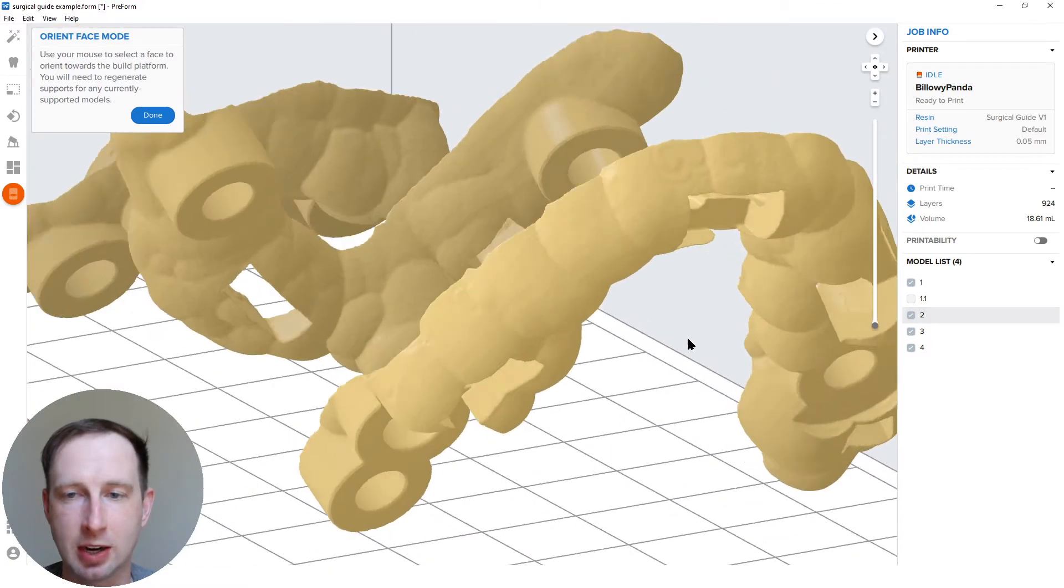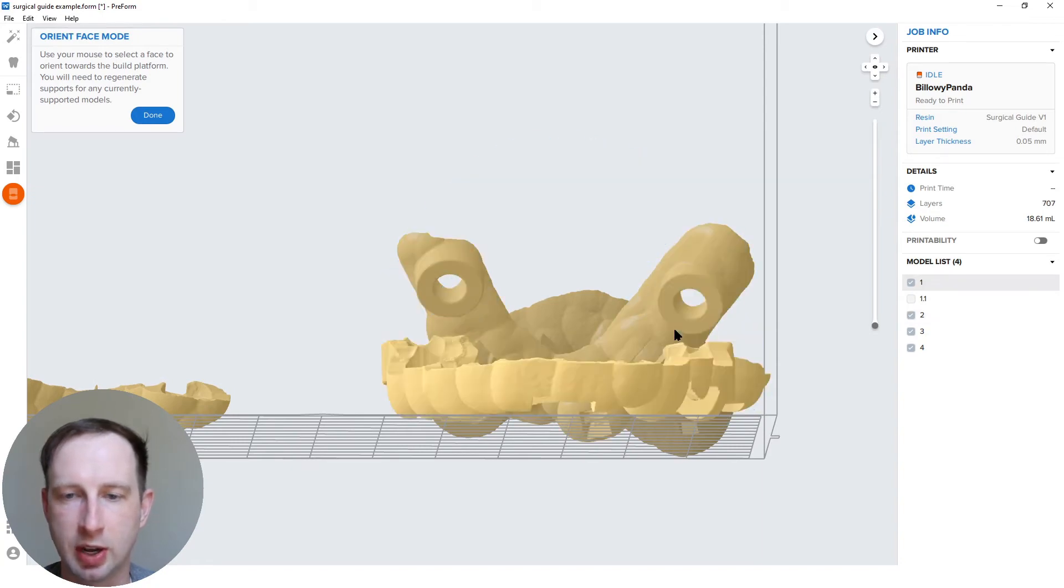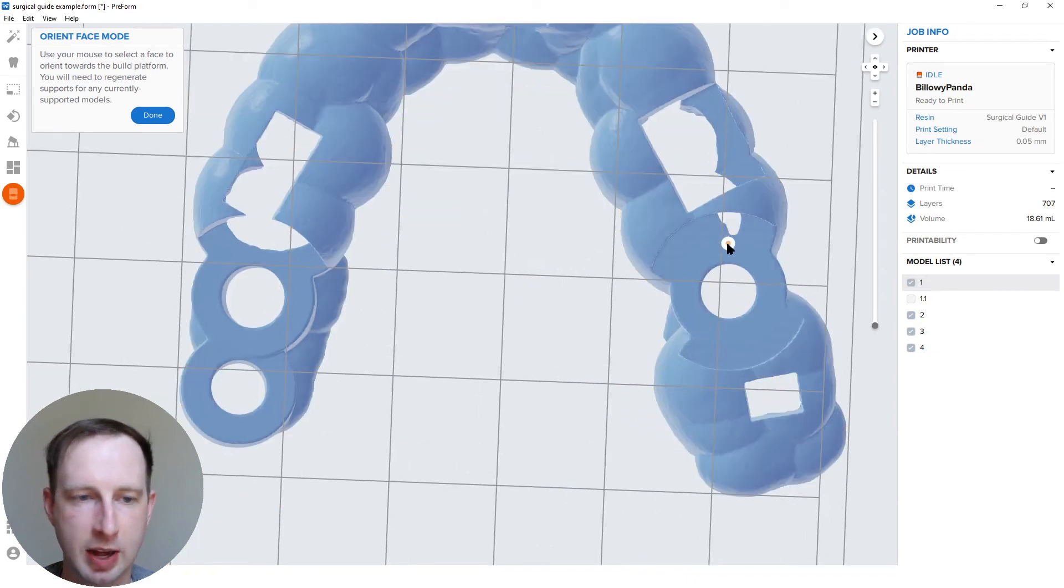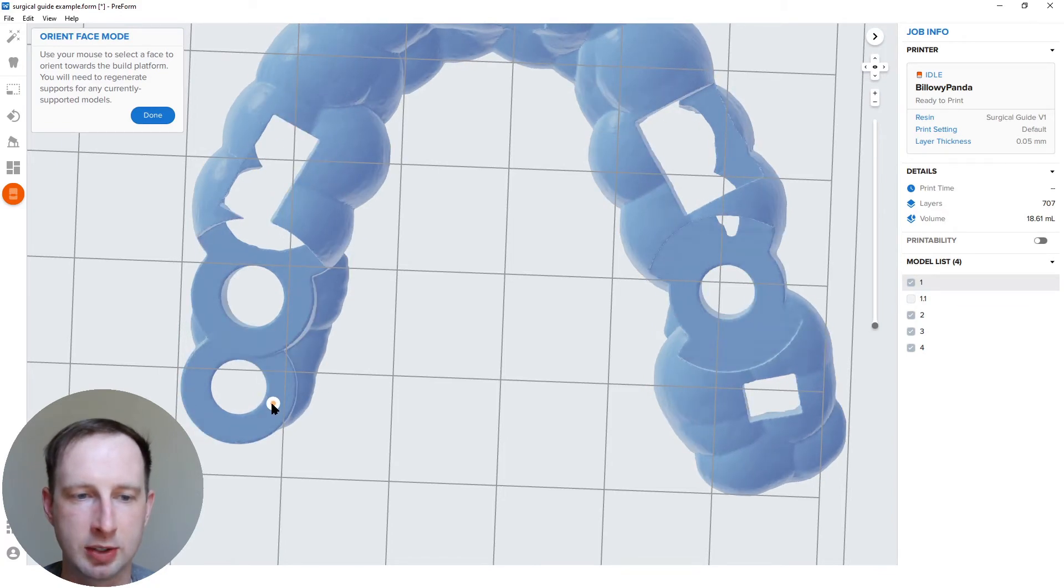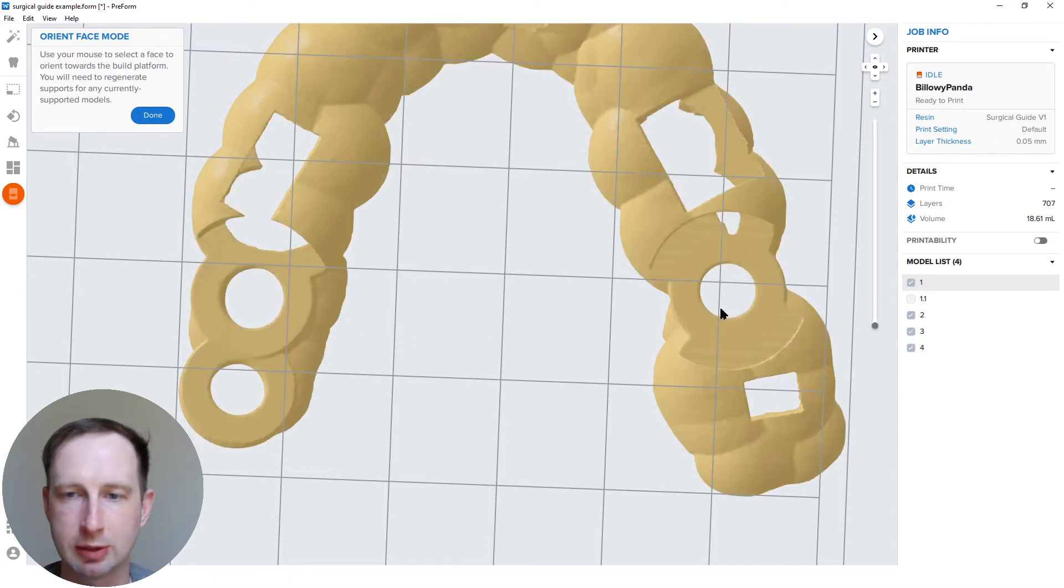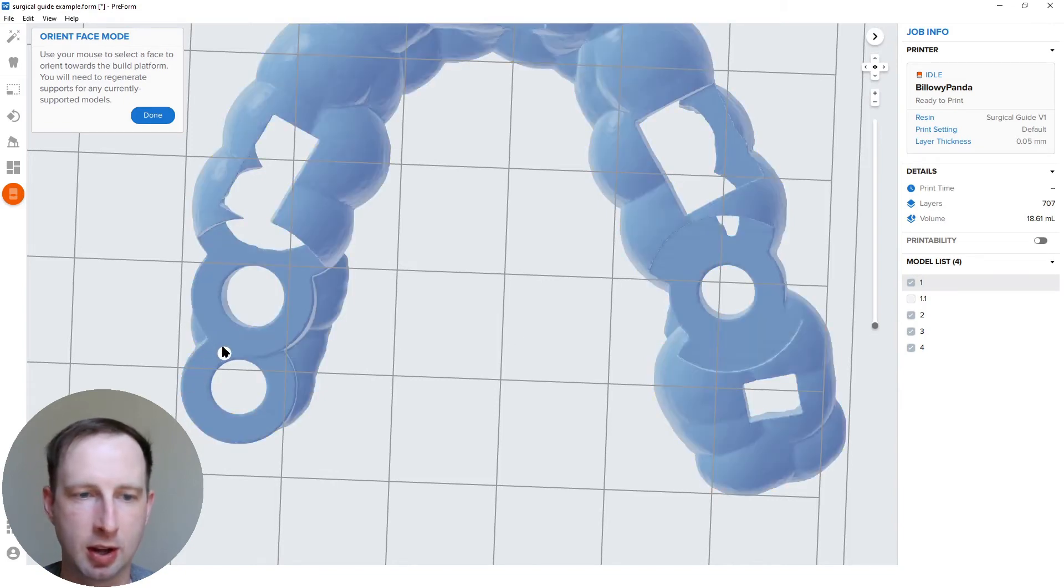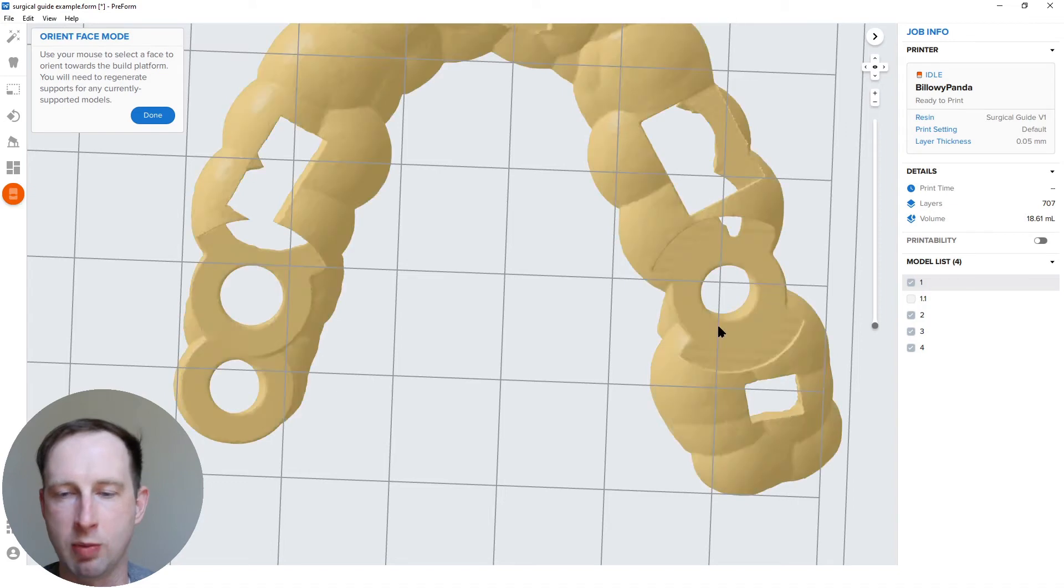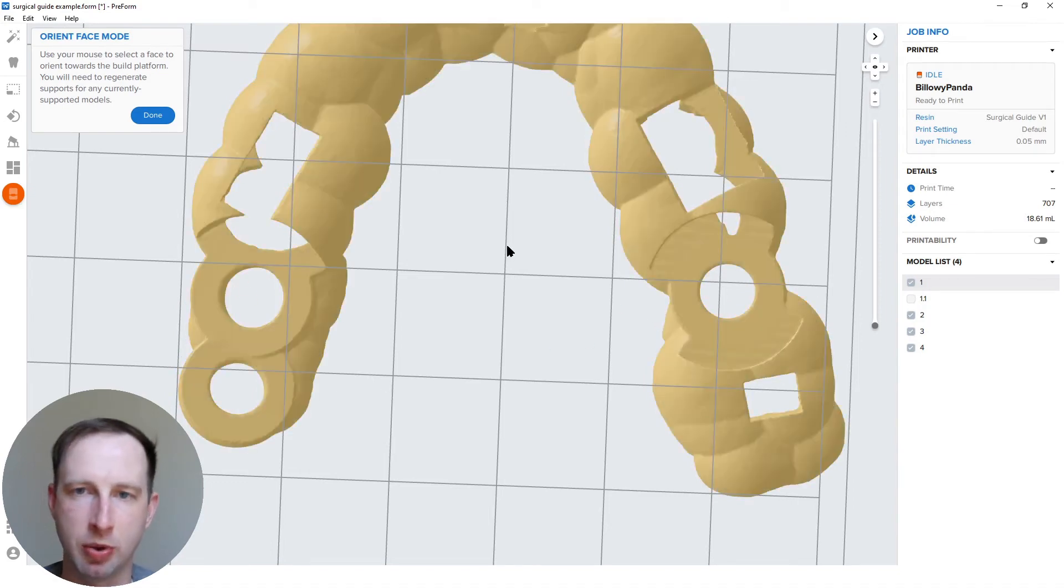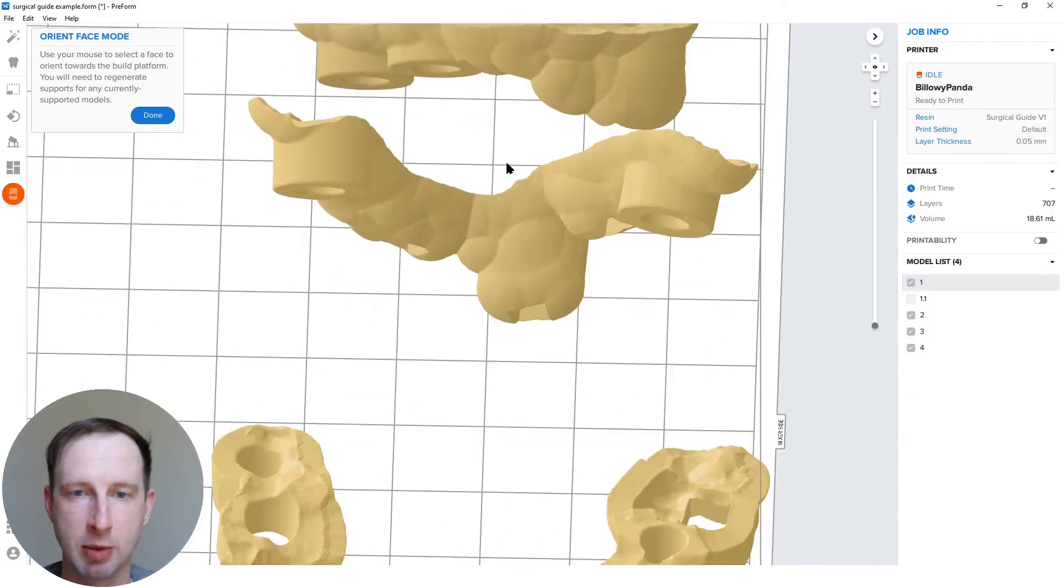Next we're going to use that same technique on a little bit of a trickier case here. There's a three unit, three site implant job here. You can see here after clicking this flat surface, a little bit of angulation difference here. And if you notice, I'm clicking on different parts of the guide's flat top surface of this part, and you can see it's tweaking it just a hair. You just pick the one that looks the best to you. So this one's perfectly perpendicular. These are less so than on those other clicks. So let me just show an example. This one is a little less ideal because this one is really good, but then these two are way more off than if I was here. This is the one I'd pick, the least angulation between the three of them. You can check it out from different views or whatever, but that would look good to me in my opinion.